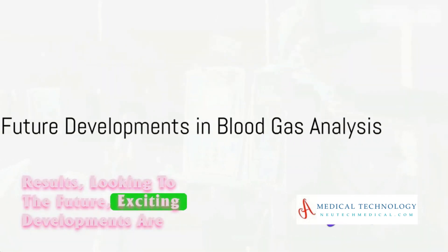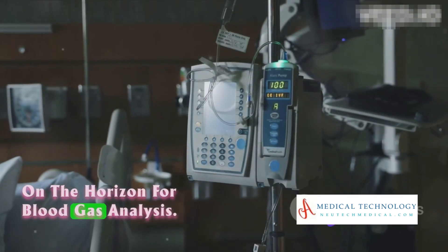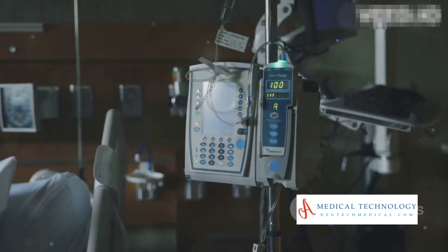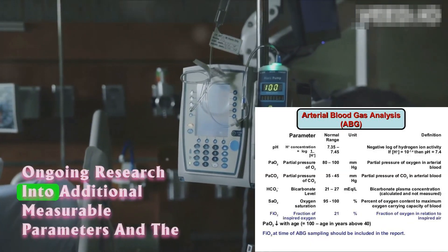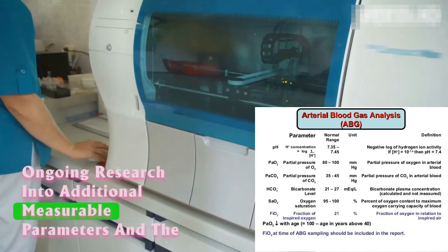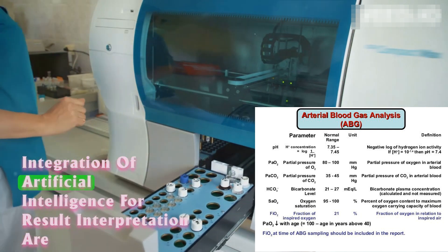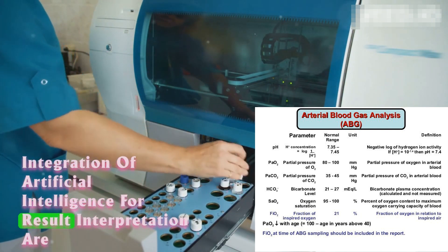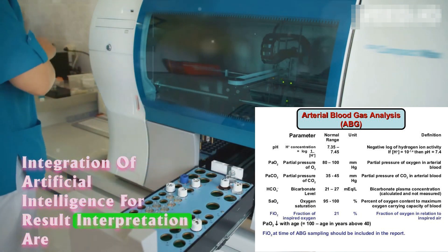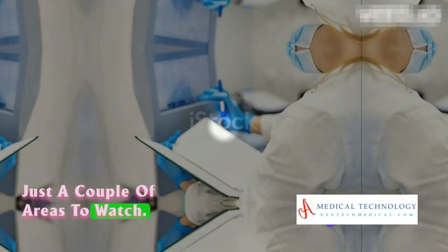Looking to the future, exciting developments are on the horizon for blood gas analysis. Ongoing research into additional measurable parameters and the integration of artificial intelligence for result interpretation are just a couple of areas to watch.